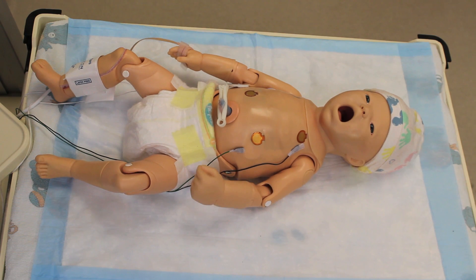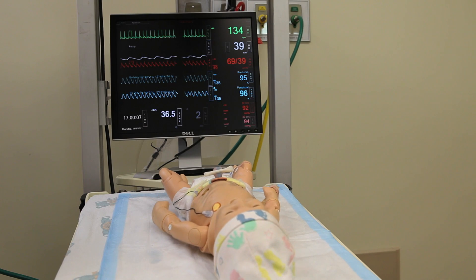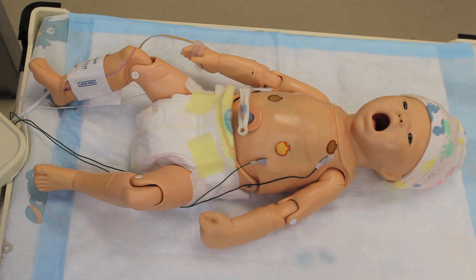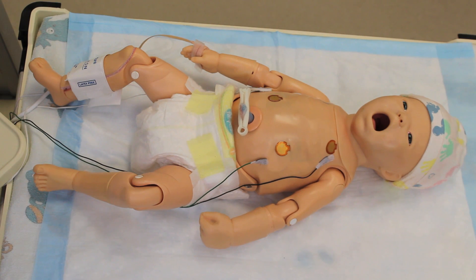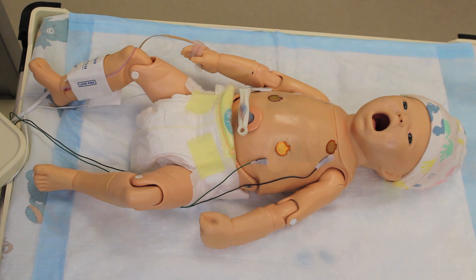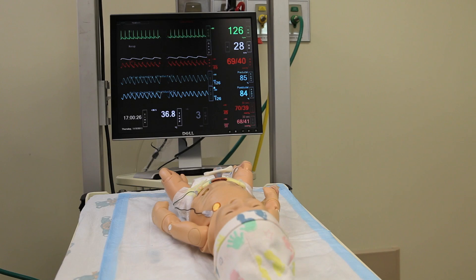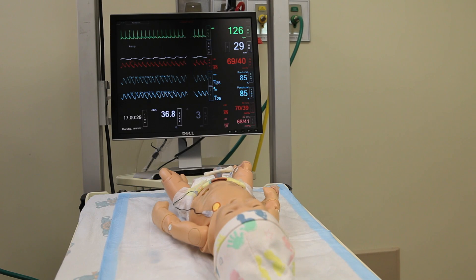He's going to move into his reduced movement. If the baby was more depressed, he would move less often. In the STABLE program scenarios, we try to correlate movement with vital signs. So if a baby was deteriorating, as we can see, he's now completely stopped moving.